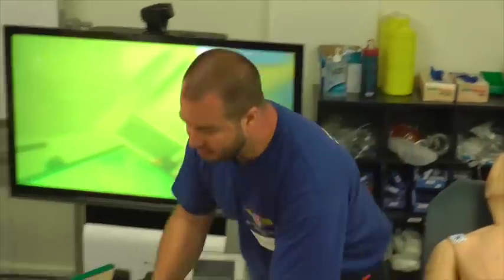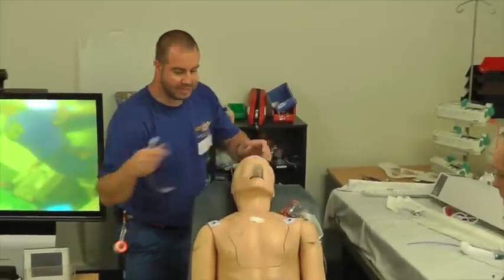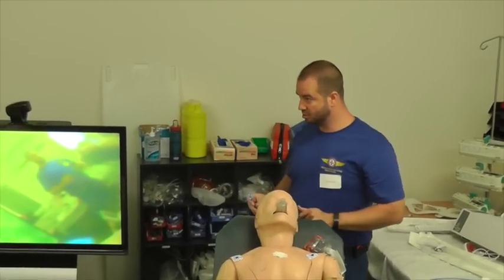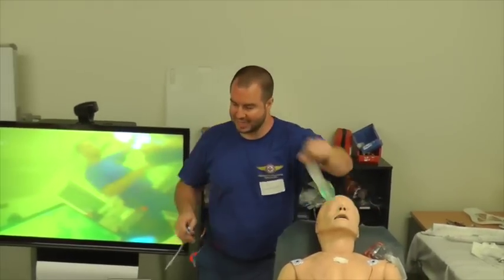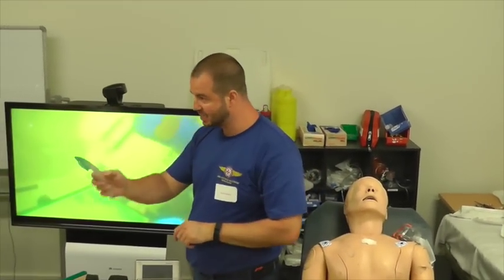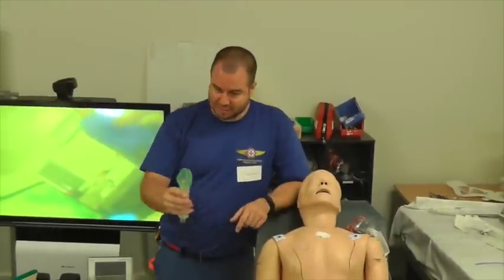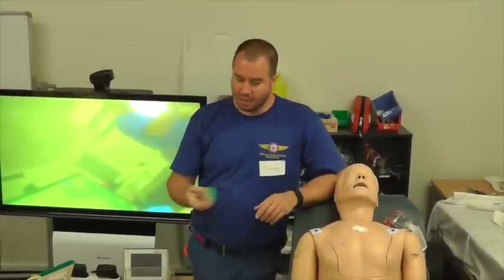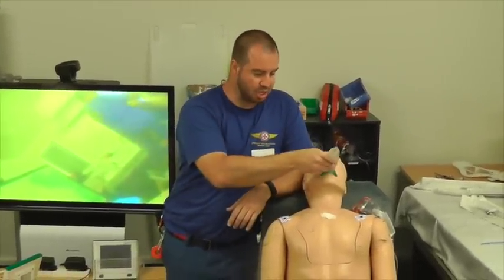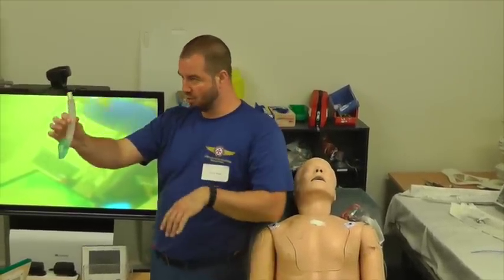Next, every now and again we will go to patients and they will be ventilated with a laryngeal mask in situ. Now, as an anaesthetist, a small part of me dies every time I see these because I hate them for elective anaesthesia. But for our purposes, they're brilliant. They are reasonably easy to insert, the seals are not too bad, and they have an inbuilt bite block.